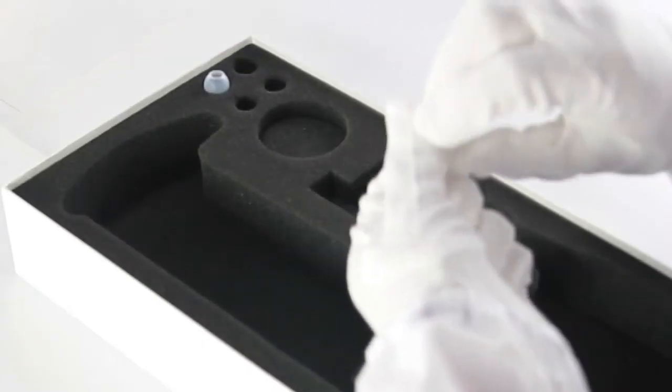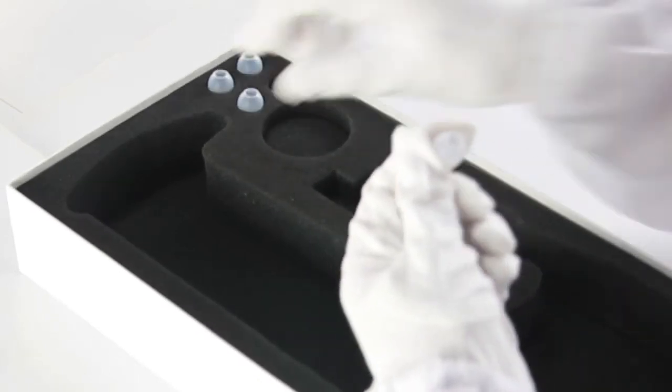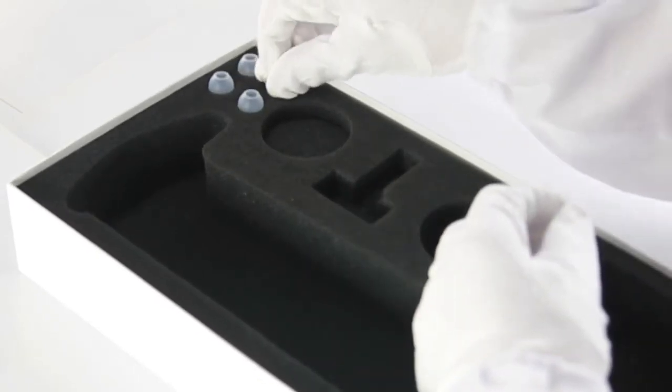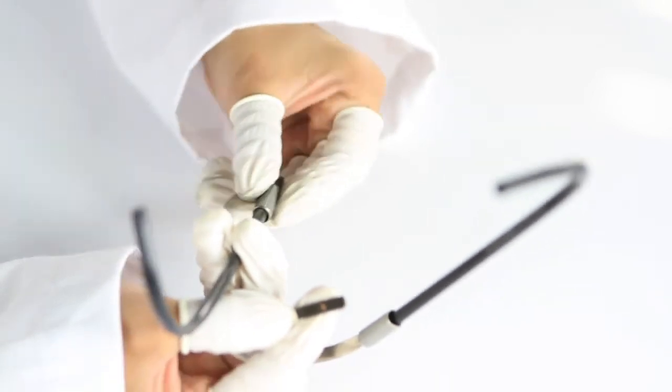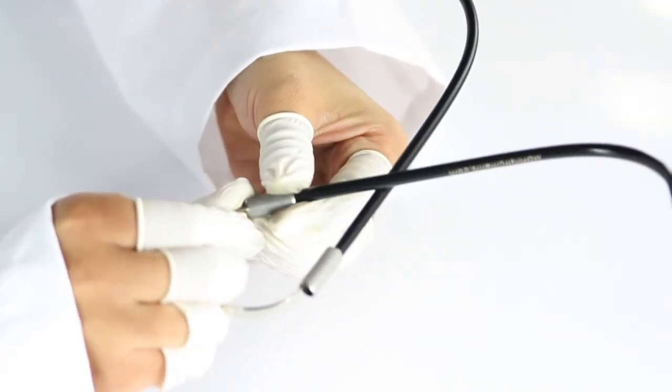We also made the tubes longer and thicker for better sound insulation. Then we made the silicone eartips softer and in multiple sizes so they're more comfortable for everyone and have a better seal to lock in the sound. And then we completely redesigned the headset so now it has a universal and an ergonomic fit.